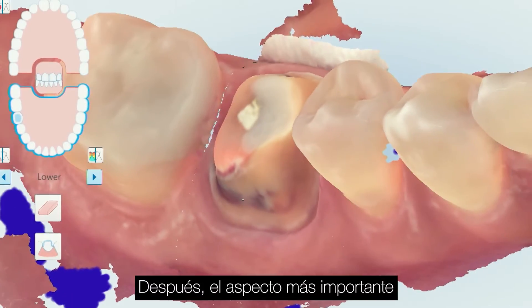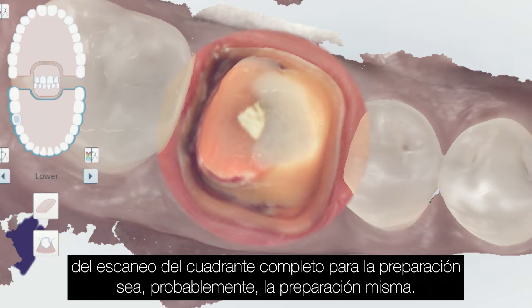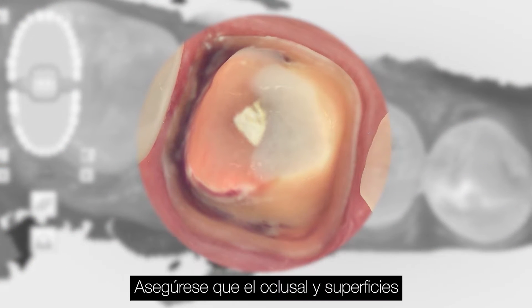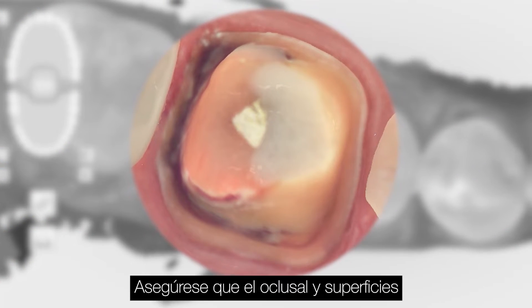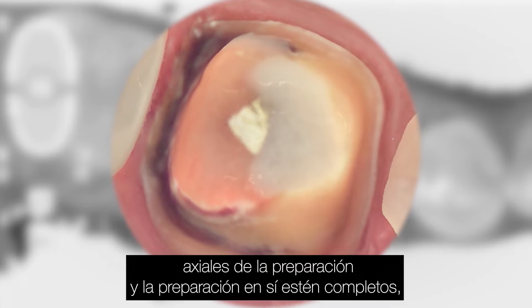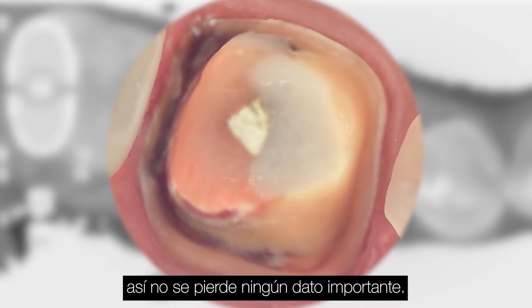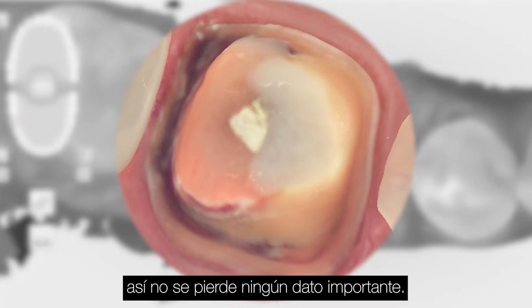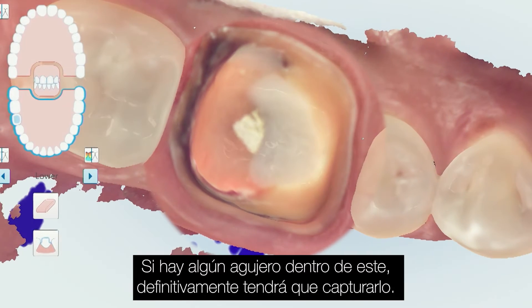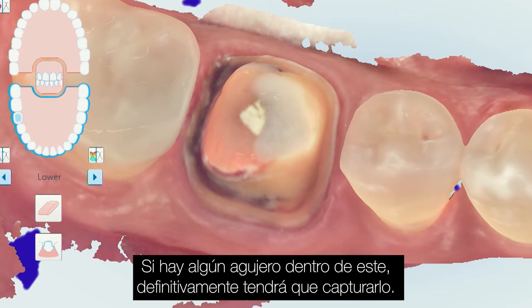Next, probably the most important aspect of the entire quadrant scan for the prep is the prep itself. You want to make sure the occlusal of the prep, the axial surfaces of the prep, and the margins are all filled in so there are no missing critical data points within it. If there are any holes within that, you definitely want to capture that and fill that in.